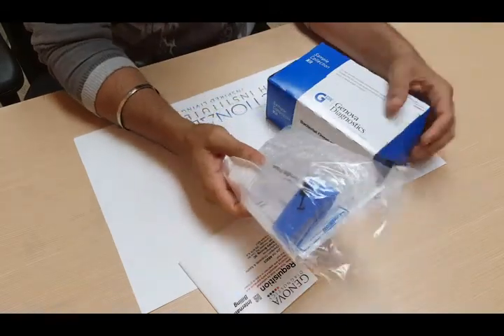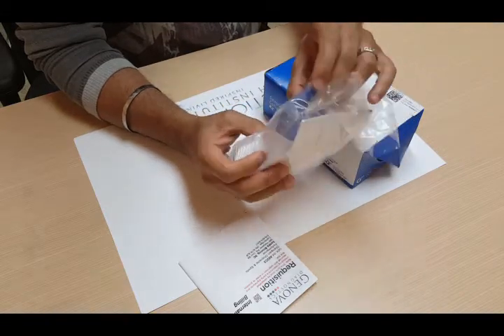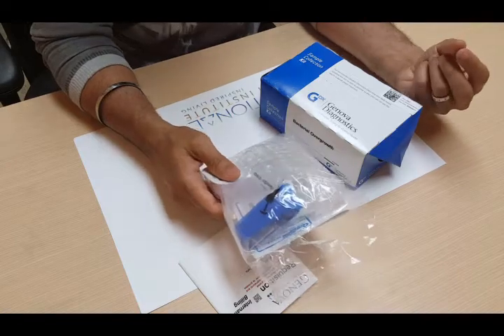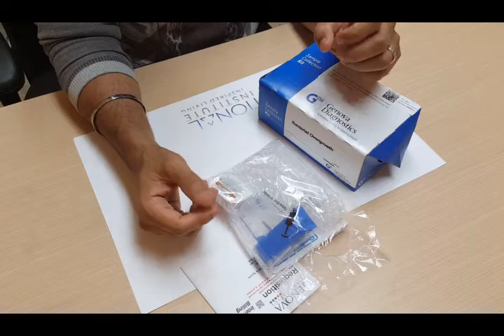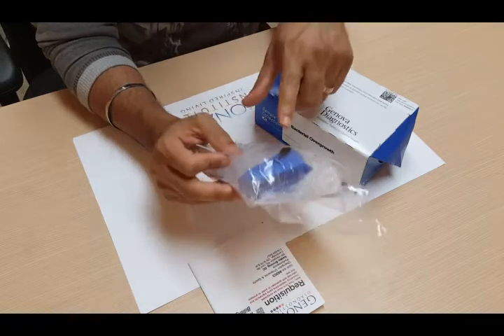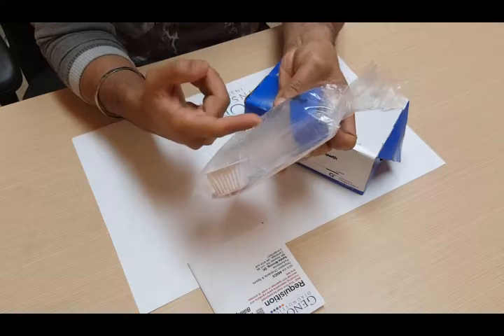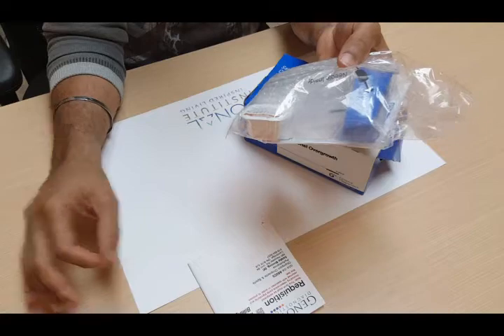Your first test will be a baseline measurement. In this test kit, there's a mouthpiece, and on the side of the mouthpiece there's an attachment where these tubes will slide into when you use them. There's also a bag attached to the mouthpiece. You take the mouthpiece in one hand and one of the tubes in the opposite hand. Breathing in normally, you inhale for five seconds, then you close your mouth tightly over the mouthpiece and exhale at a normal breath — you don't force the air out, you do not blow hard. This bag on the end will fill. When it's fully filled, take the sample collection tube and slide it in. There's a needle in there, so you'll pierce the top over the needle and let it fill for two seconds. After two seconds, remove the sample collection tube and place it to the side — that first one should be numbered one.